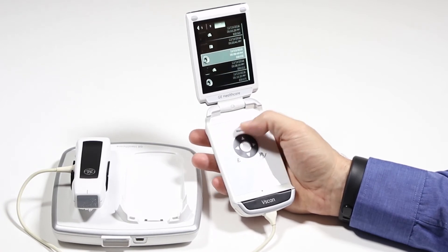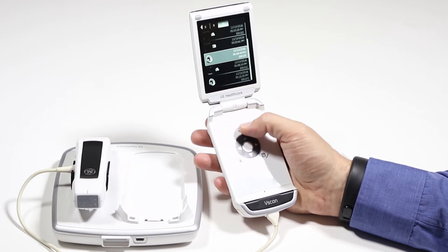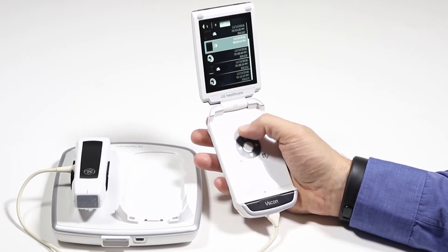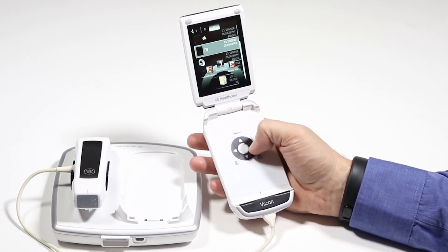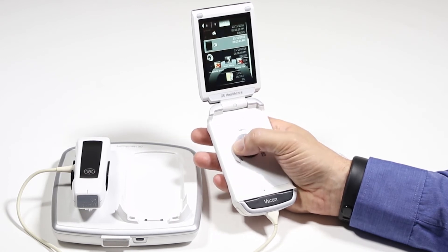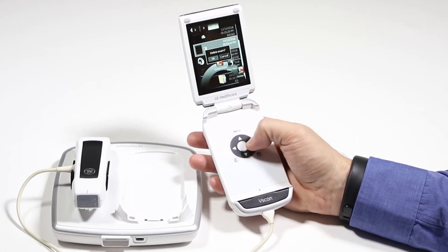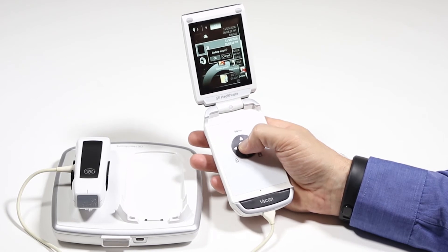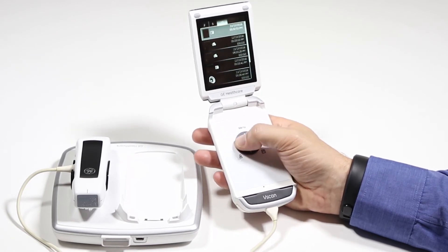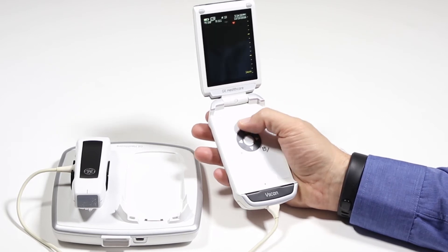If I want to delete any of the exams, I'll press the menu button, go to the image I want to delete, press menu, and it'll allow me to delete the exam or the file. I can click left or right, go ahead and delete that exam, and click OK. Then press and hold the center to go back to scanning.